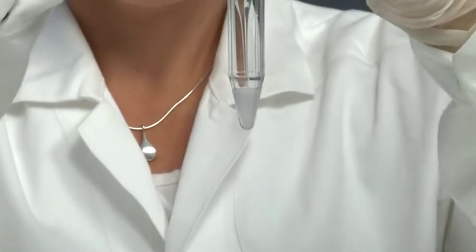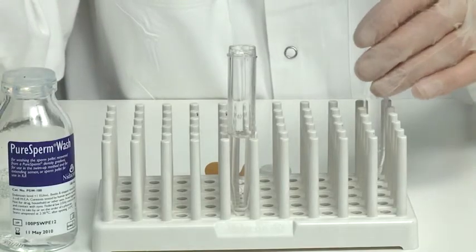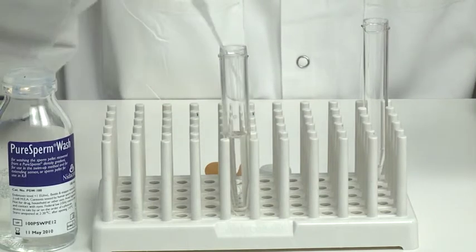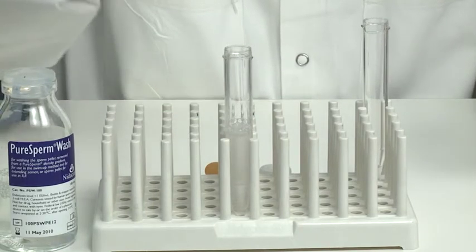Transfer the pellet to a new sterile conical centrifuge tube containing 5 milliliters PureSperm Wash. Suspend the pelleted sperm in PureSperm Wash.